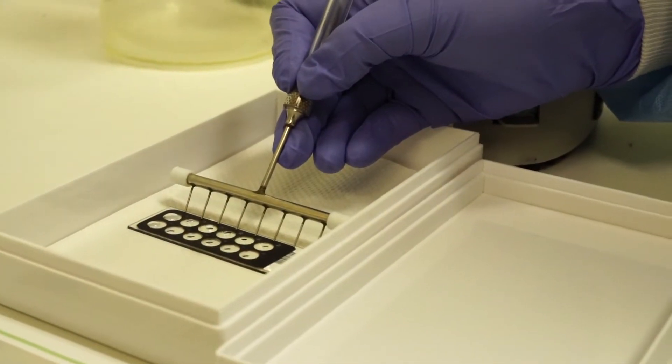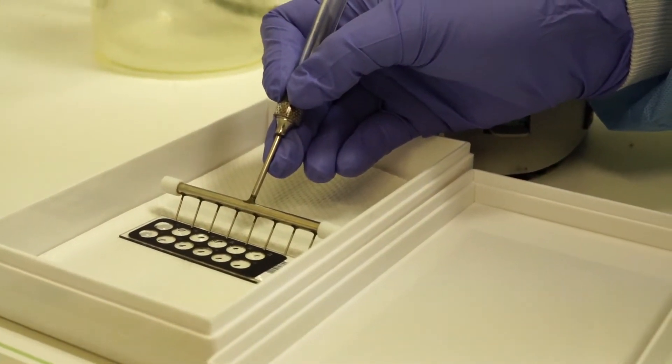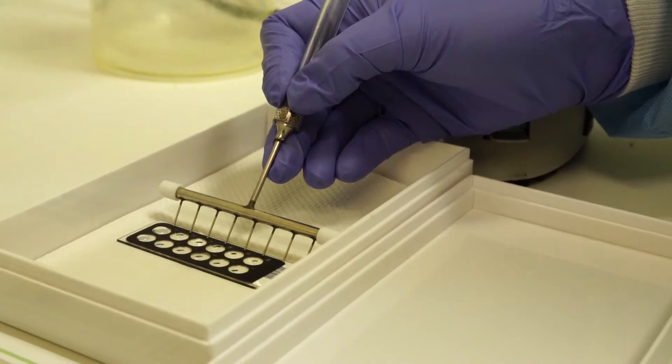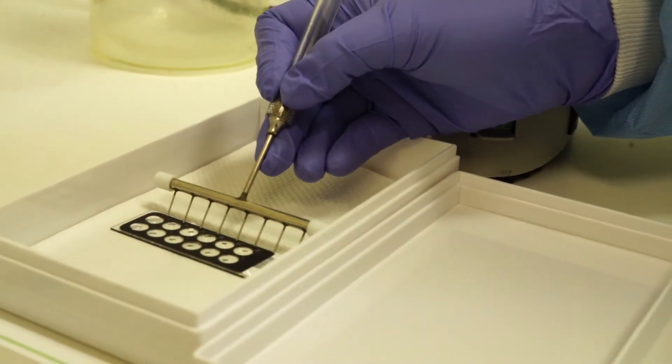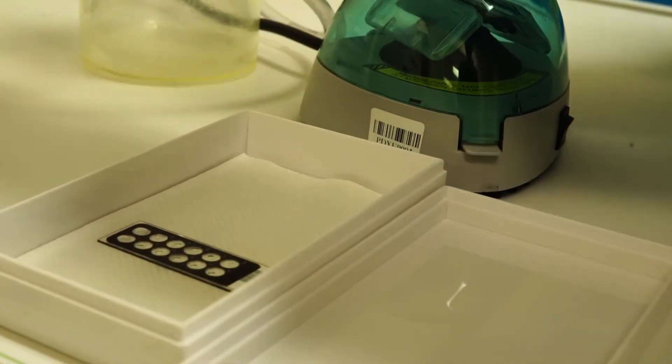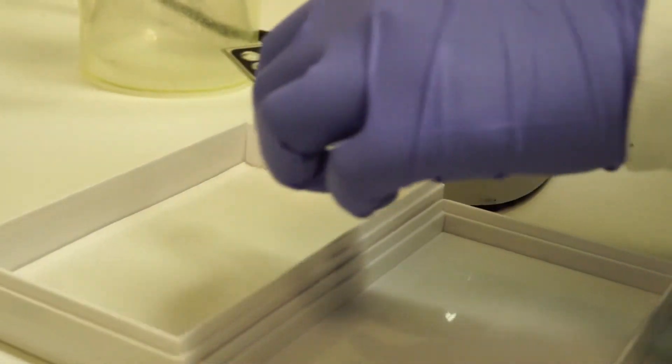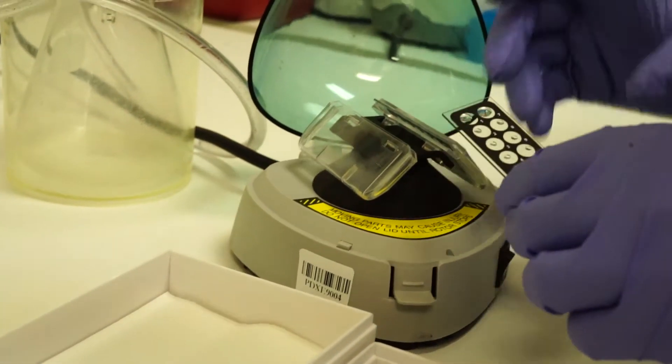After the wash buffer has sat for 10 minutes, remove the wash buffer, dispense two more times, and aspirate. On the final aspiration, quickly take the slide and place it into the slide centrifuge.